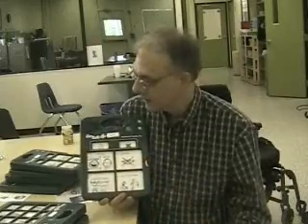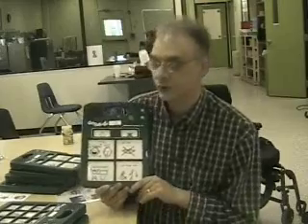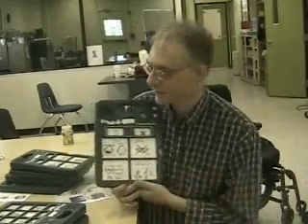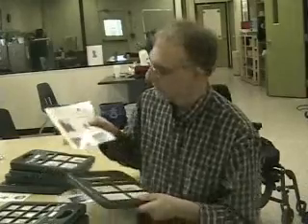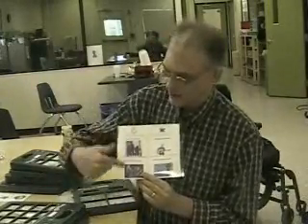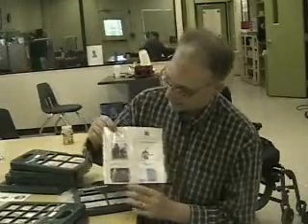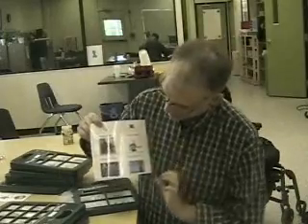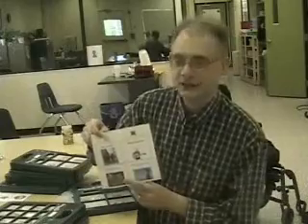These are all expressions that a child in my class could use just on the fly, not attached to any specific lesson. But if I want to use a lesson, then I can pull out an overlay. This one I happen to use photographs that I got from Google about music. It says play some hip hop, play some country music, play some rock and roll, play some religious music. You know, just giving them some choices and preferences.